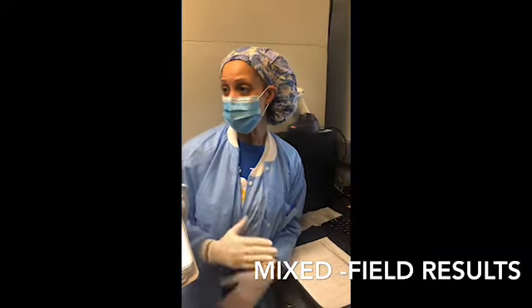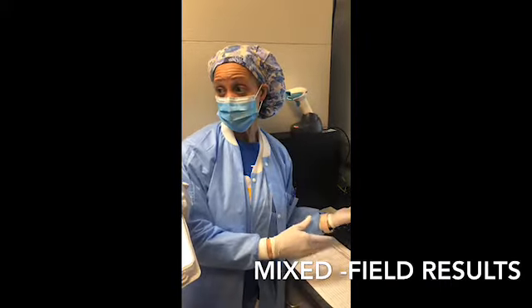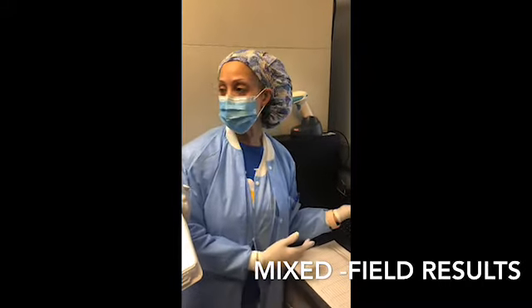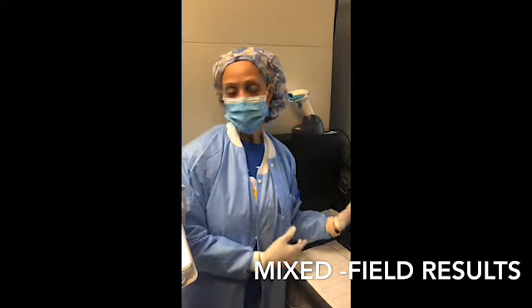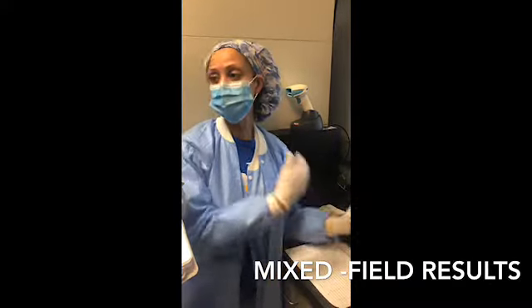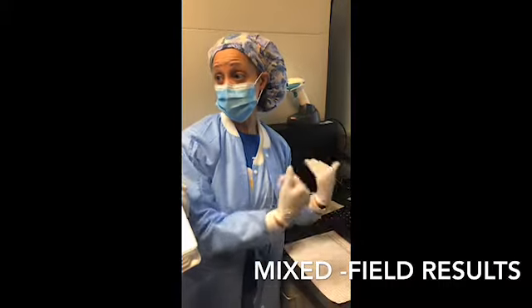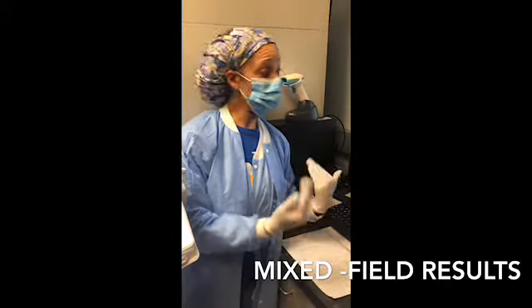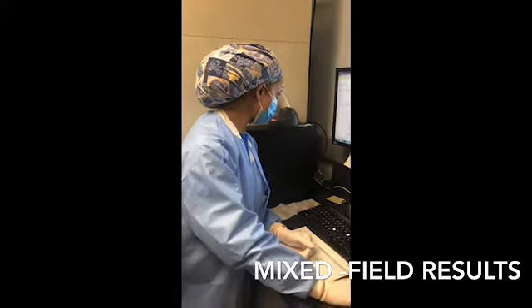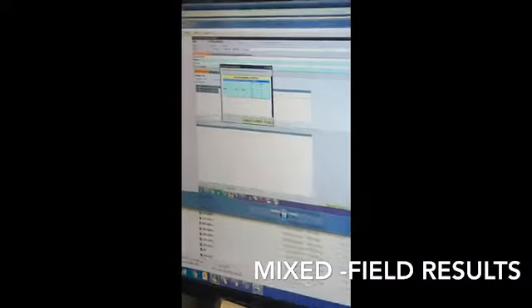If you can justify that, it will cross over on the Vision onto SunQuest, but it's going to give you an acknowledgement QA. Don't be alarmed on the acknowledgement QA, okay? Just go ahead and select it and keep it moving. It's going to give you a couple of them, but the results will transfer over. So it's going to transfer over as an MFA, and it's going to look like this.